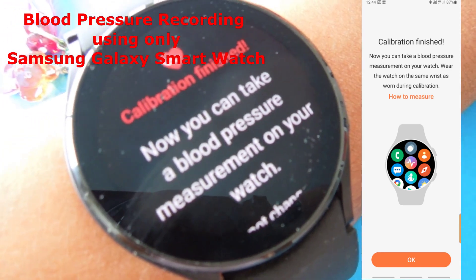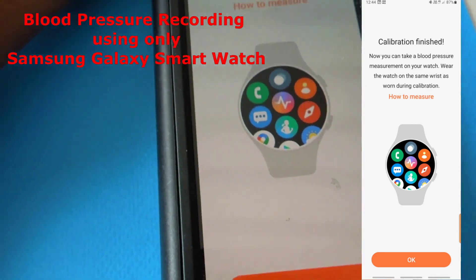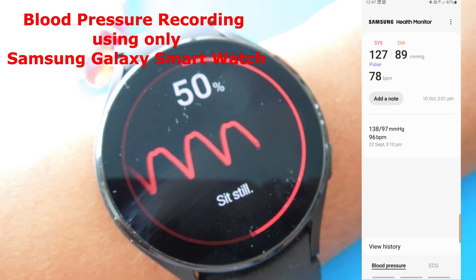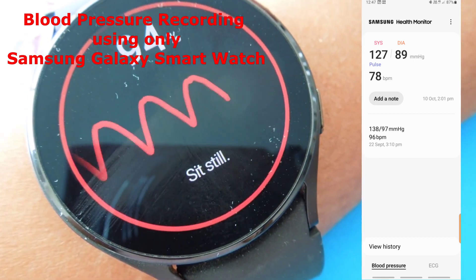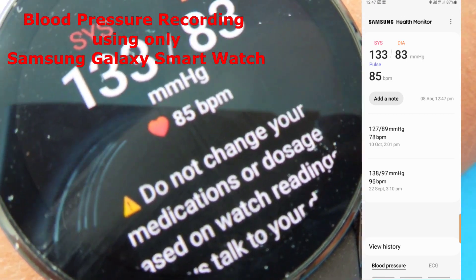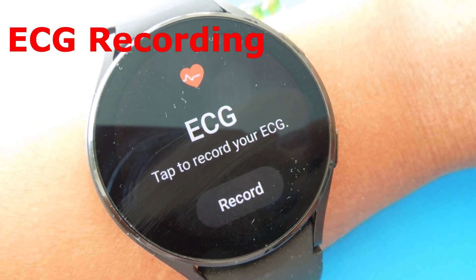Now that all three readings are done, the watch says you can now take a blood pressure measurement using your watch because calibration is finished — the same confirmation appears on the phone. The watch has started measuring my blood pressure and brings up the result: 133 over 83, with a heart rate of 85 beats per minute. It also says do not change your medication or dosage.